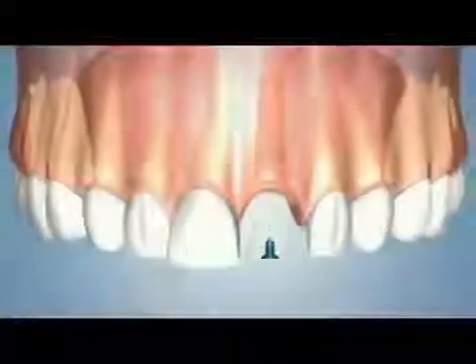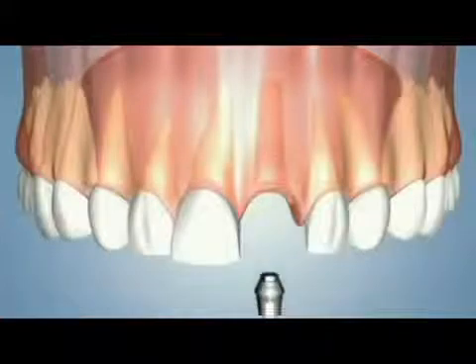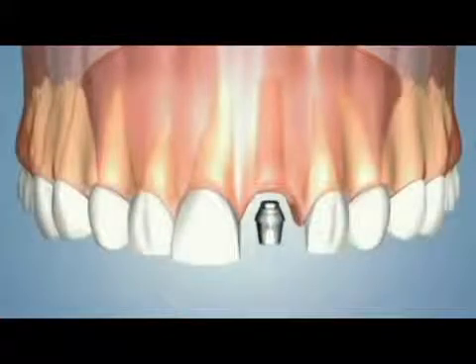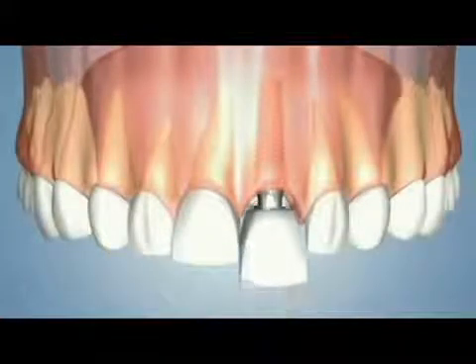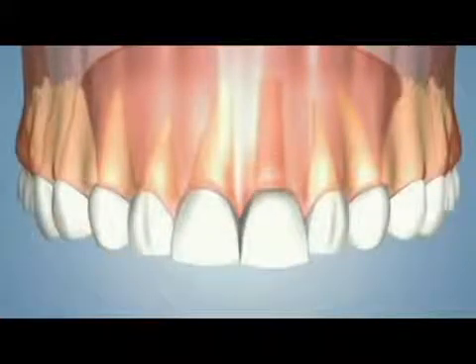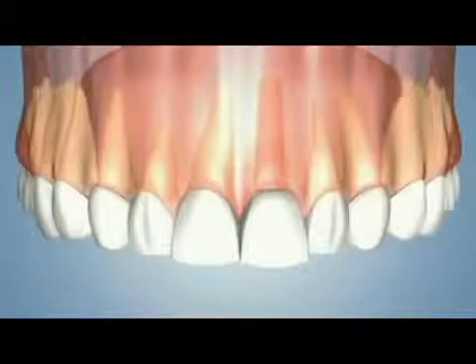It usually takes between two to four months for the bone to securely bond to the entire implant surface. The final phase involves the custom restoration being fitted and securely placed.